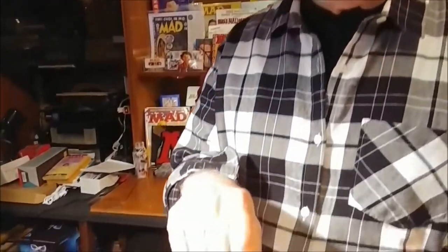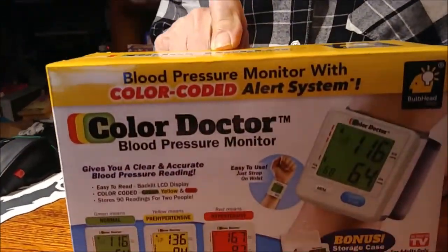So I'm walking through CVS and once a month I stop by the As Seen on TV department because that's where you get quality merchandise. And now I found something I've never seen before: medical equipment.